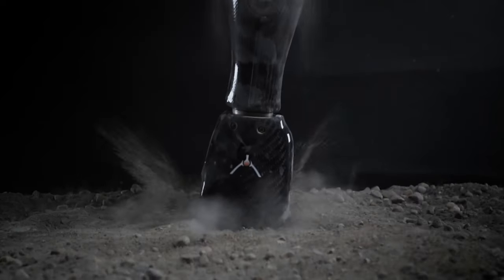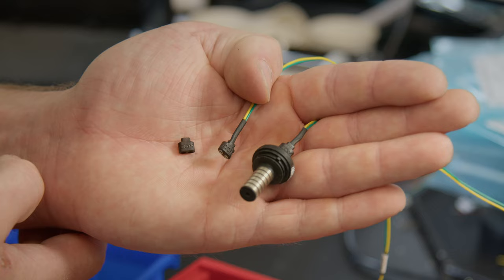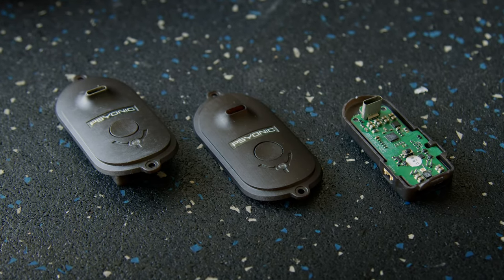physical properties, thermal resistance, impact resistance. The TUF 1500 is honestly the best thing we found and we continue to use it in all our commercial devices.